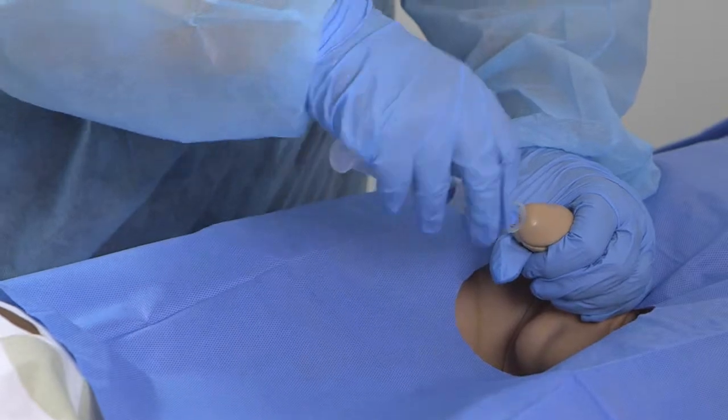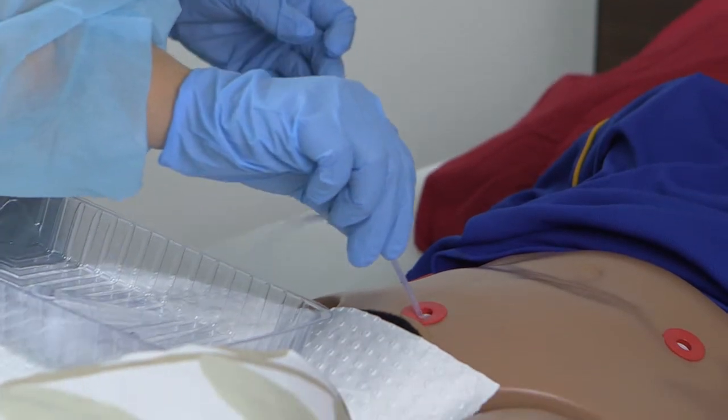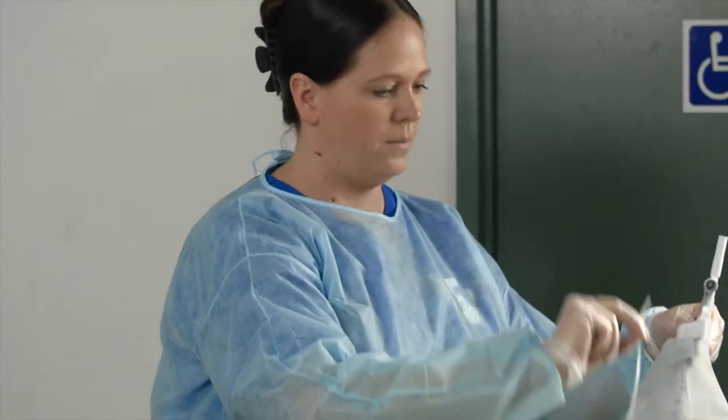Just put that in and insert it into the pan. Hold it upwards — always upwards.